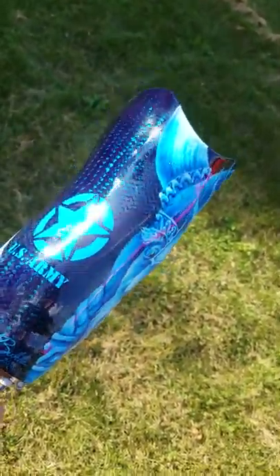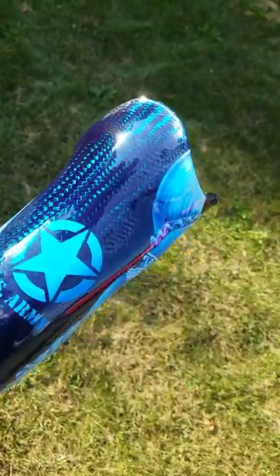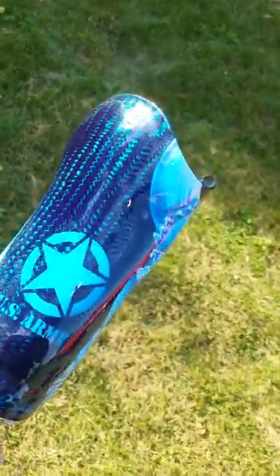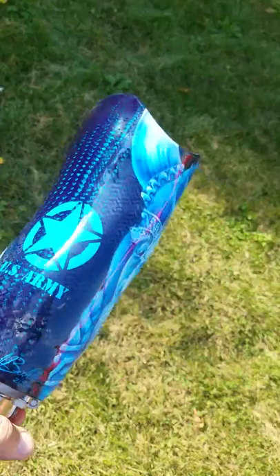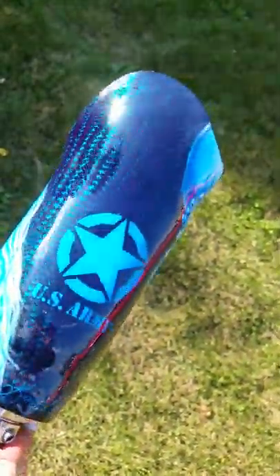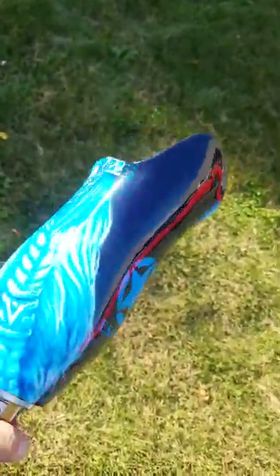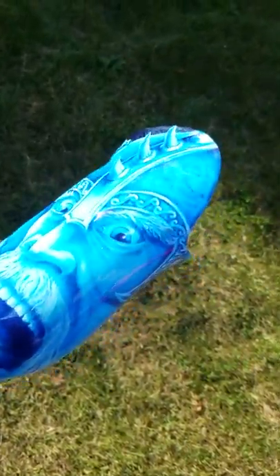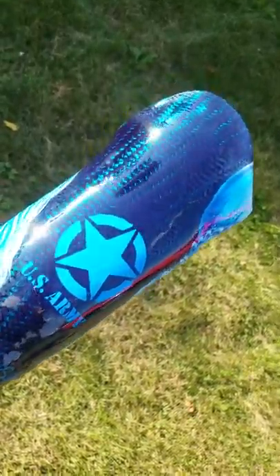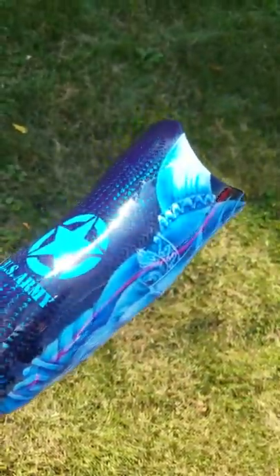Custom paint is so much better than a wrap or a decal — I think it's what they deserve. The advancements in prosthetics have come such a long way. I don't expect them to put their resources into aesthetics, but a decal and a wrap doesn't make it unique to the individual like a tattoo would. It's unique to your design, your specifications, your interests.